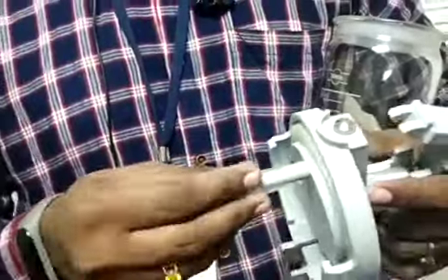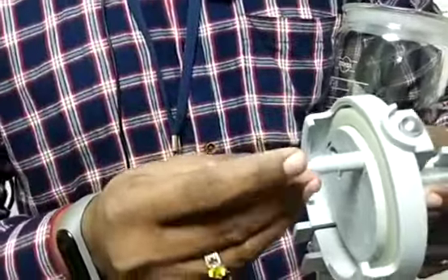This is the sensor for overflow. We are going to put this protector over the sensor. So this we have fixed here.